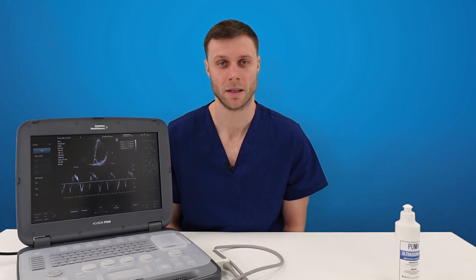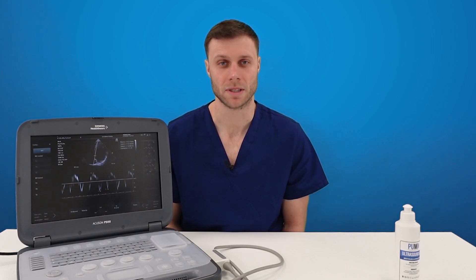TDI is a way of measuring myocardial velocity. We're all used to measuring blood flow velocity using our color Doppler, our pulse wave or our continuous wave, and TDI uses the same physics principles. However, when we measure the velocity of tissue the wave we get back is a high amplitude low frequency wave, whereas when we measure blood flow the wave we get back is a high frequency low amplitude wave. So all tissue Doppler imaging does is filter out the high frequency low amplitude waves and leaves us with the high amplitude low frequency waves, and this is the velocity of the myocardium.